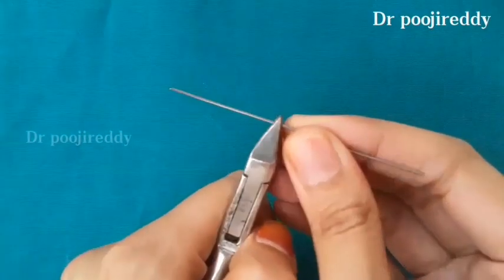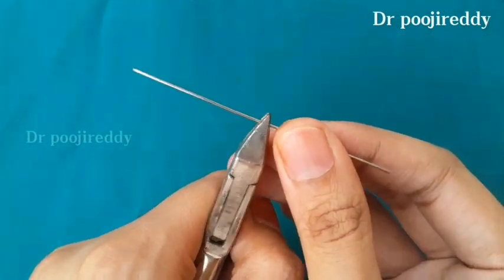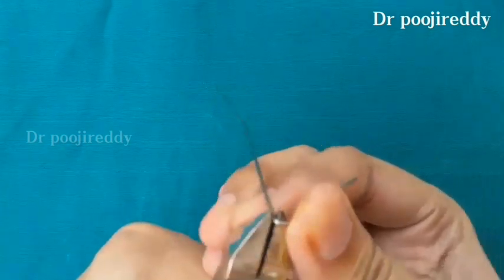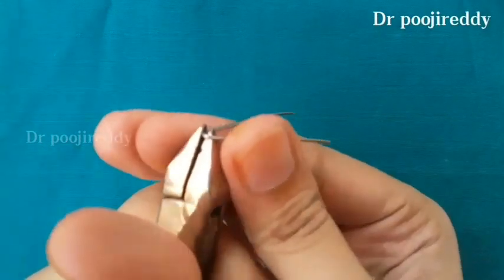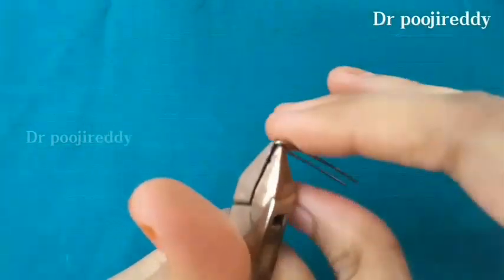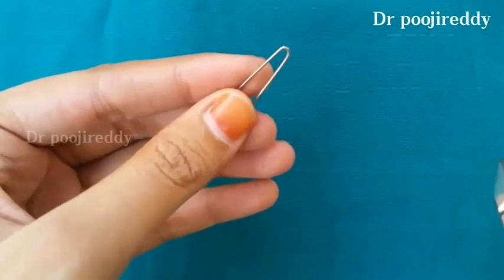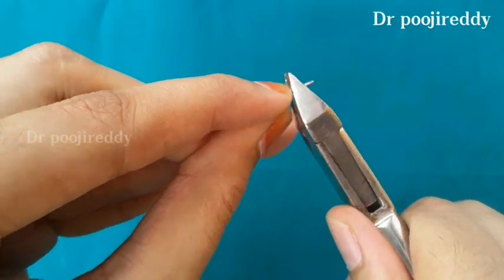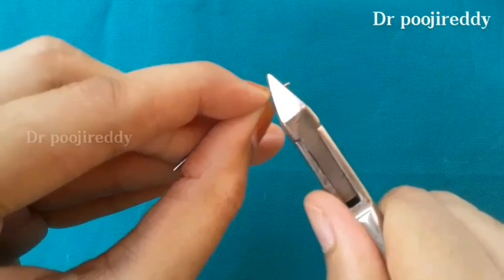After getting this tightened wire, bend it around the beak of the Adams plier so that it will be in a U-shape. We should get the U-shape after the bending, and then compress the wire a bit so that we can obtain the desirable arrowhead.